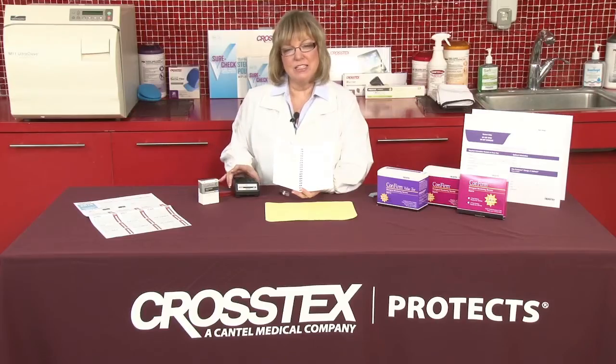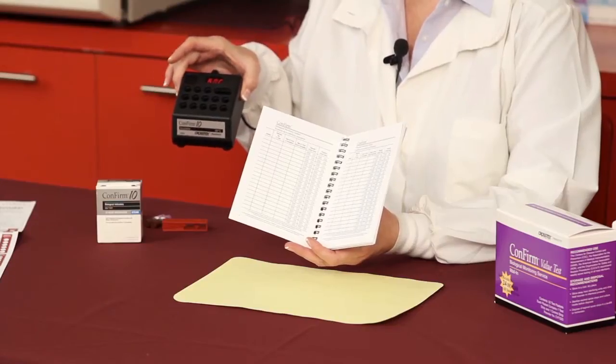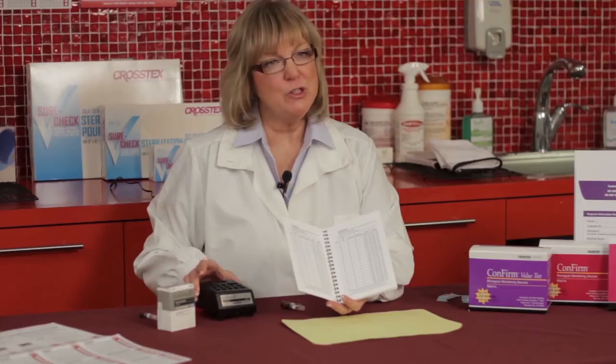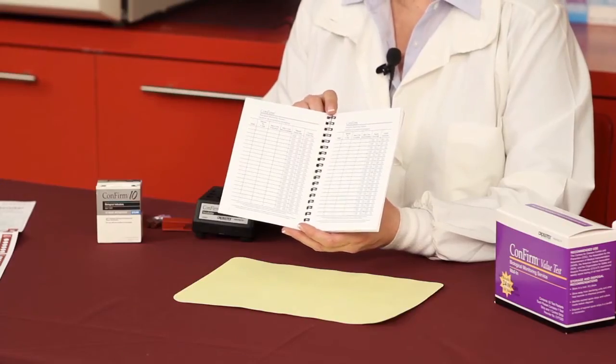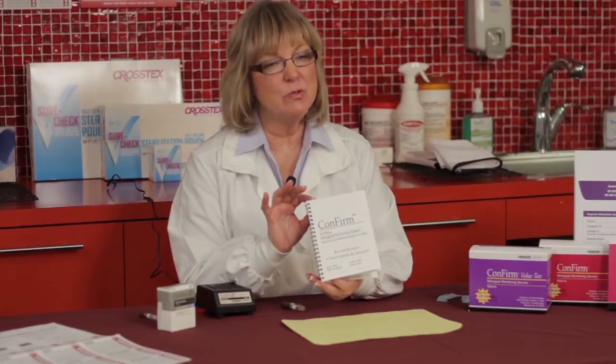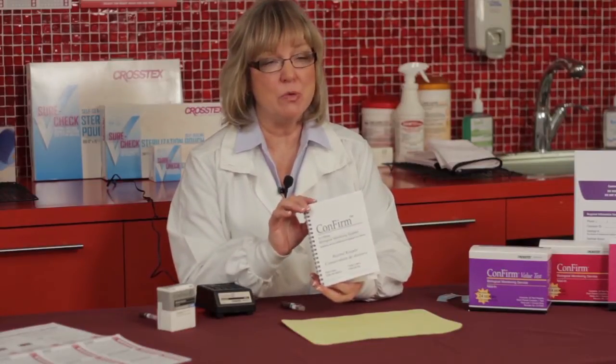What you've done is run your test through your sterilizer. You've then taken both the test and the control, and incubated them at the appropriate temperature for the appropriate period of time. Once you've removed the vials from the incubator, you're going to read the test results and record each and every test and control that's run on a weekly basis, keeping those records for different periods of time depending upon your individual state boards.